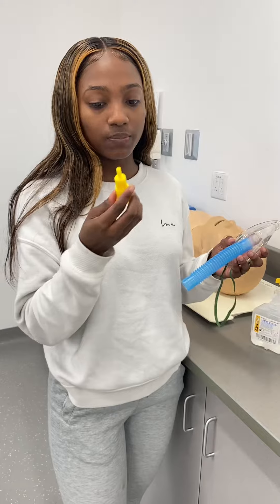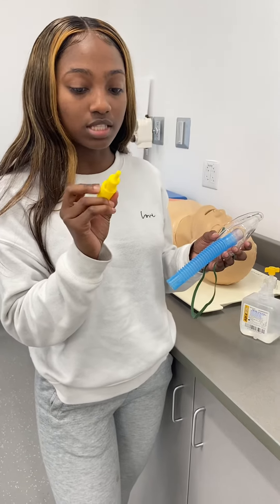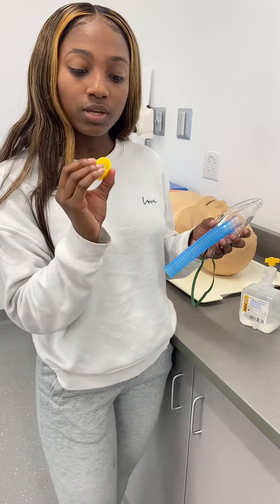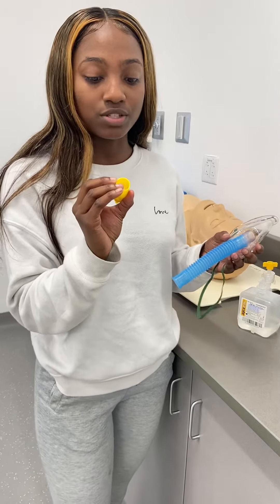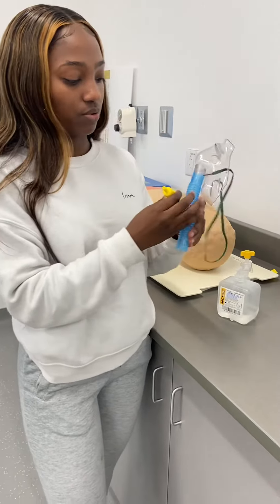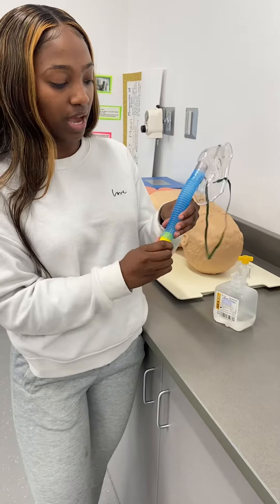It labels how much oxygen, or how much flow, you should give the patient. So this one is 28% FiO2 with 6 liters per minute. You hook it up to the bottom of this.